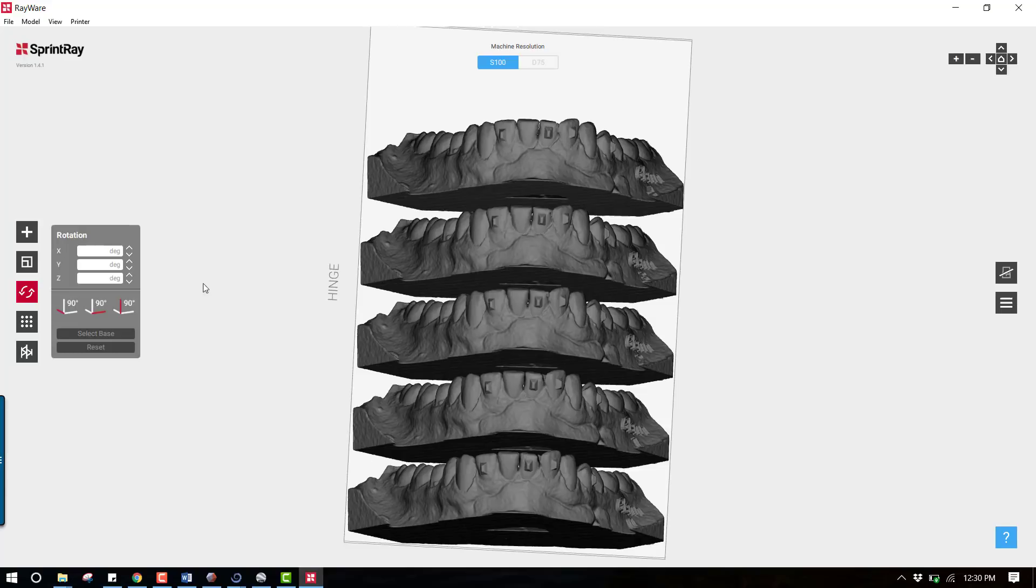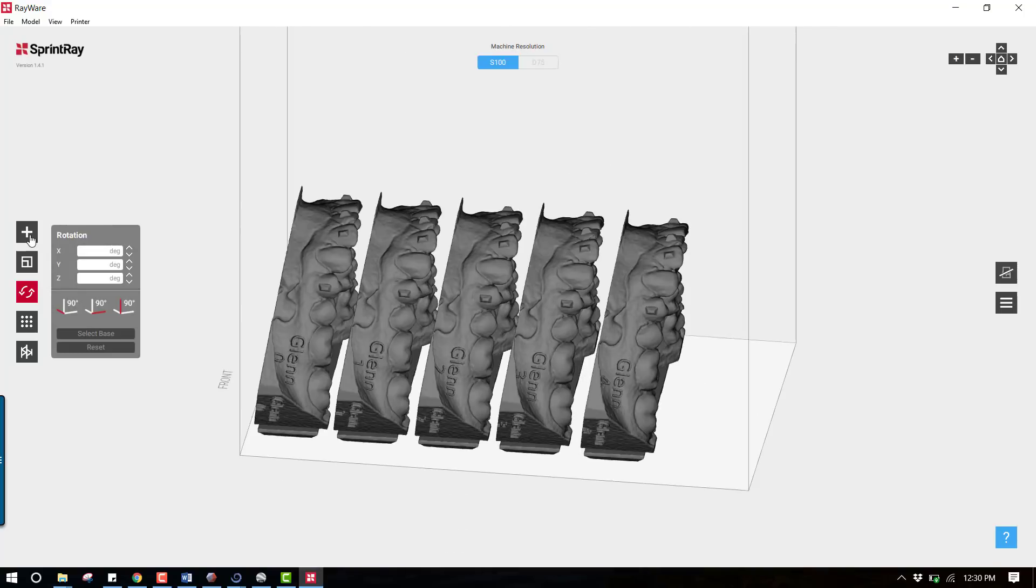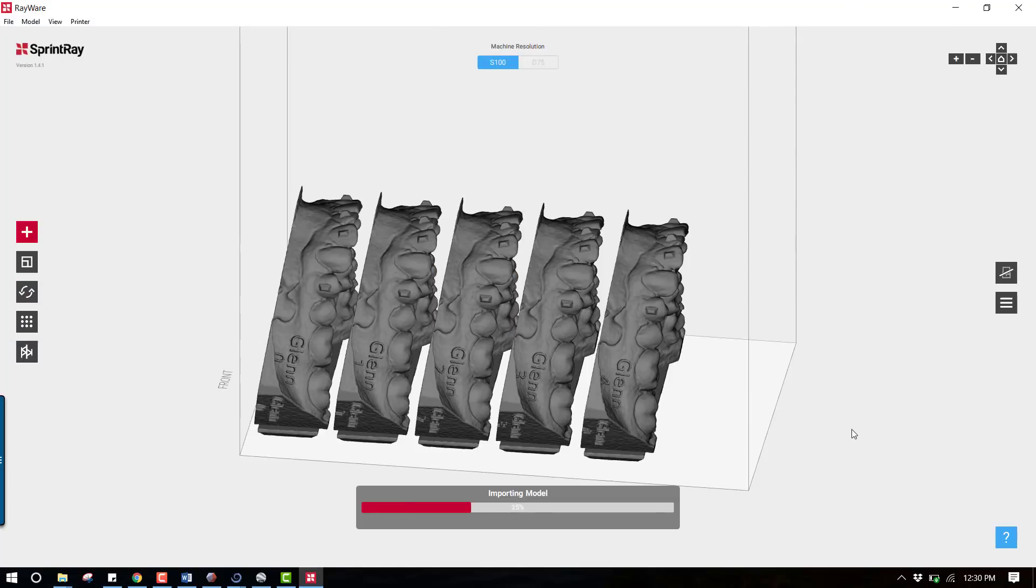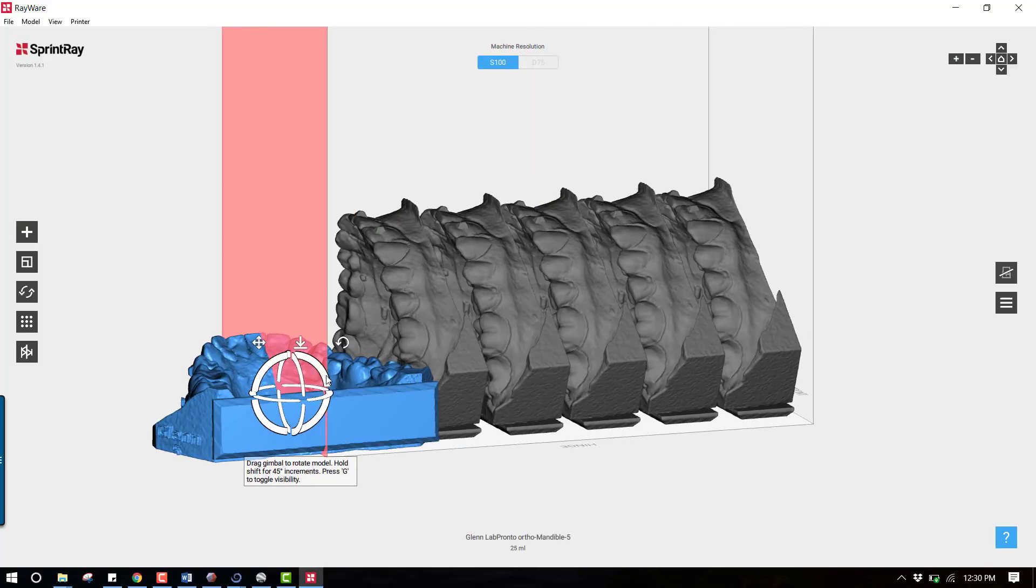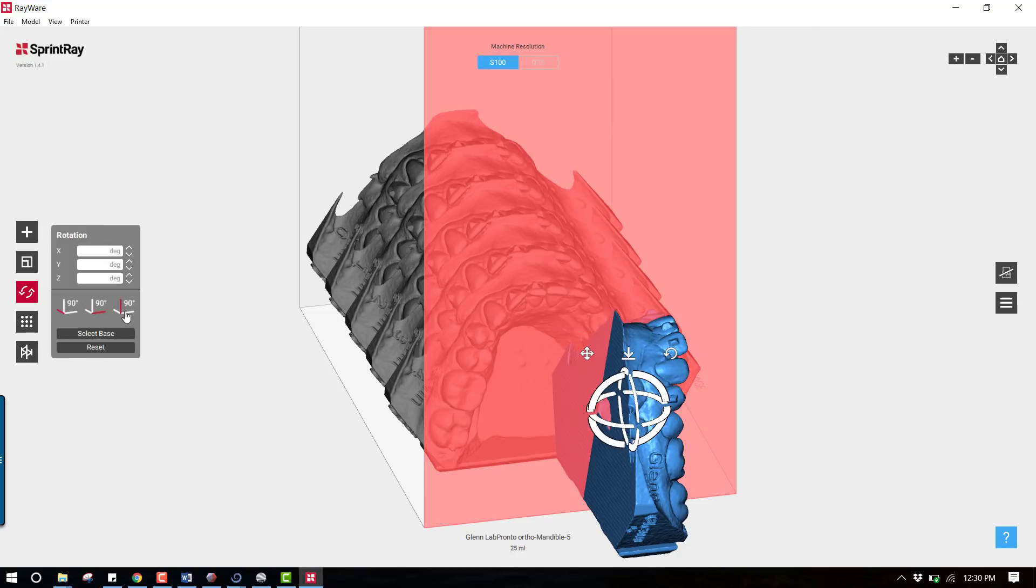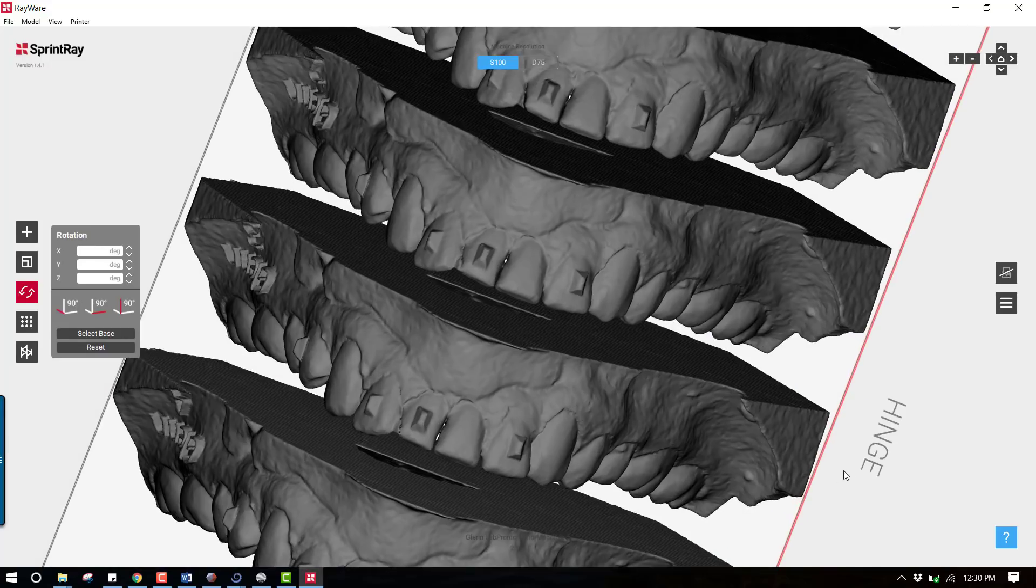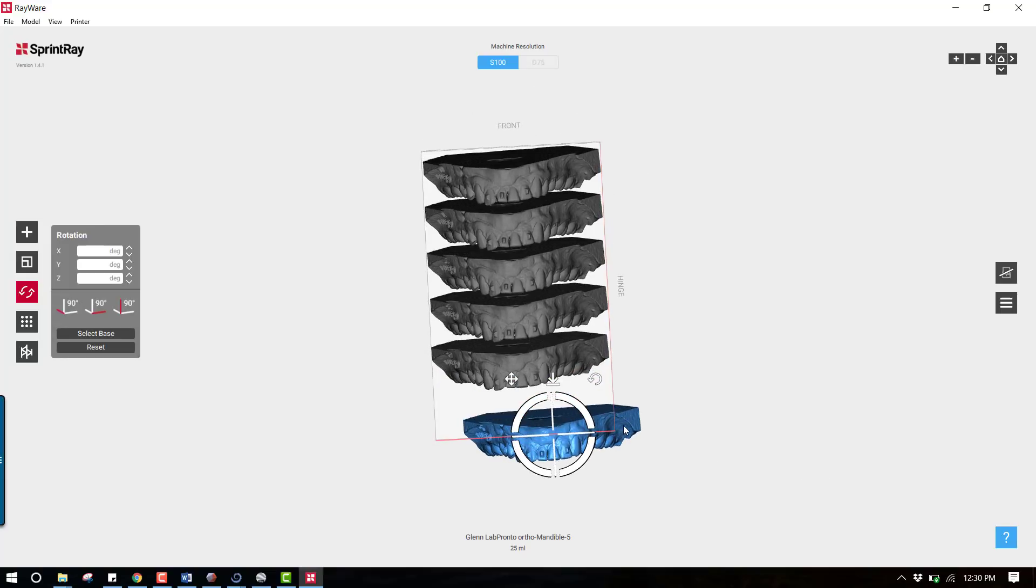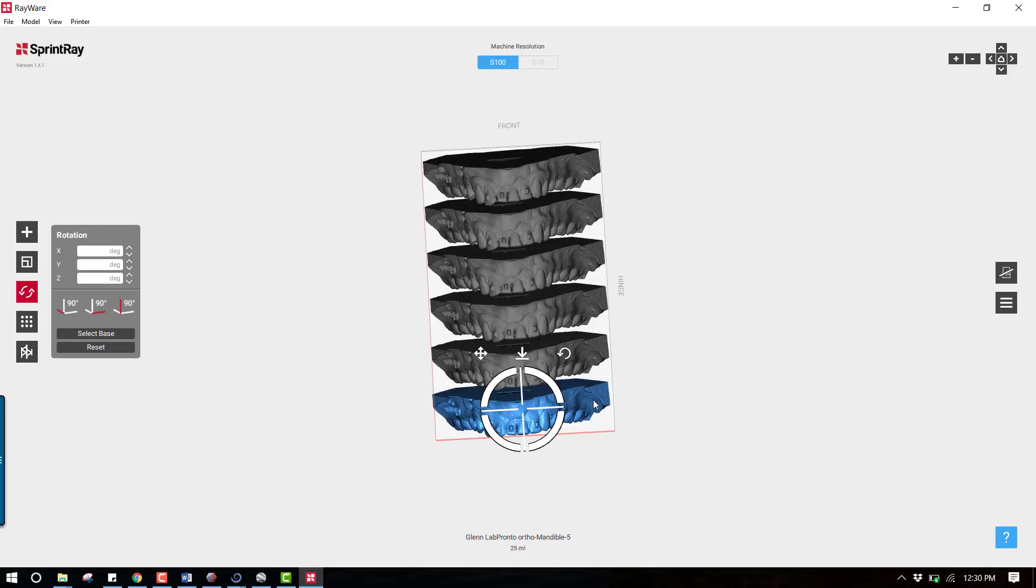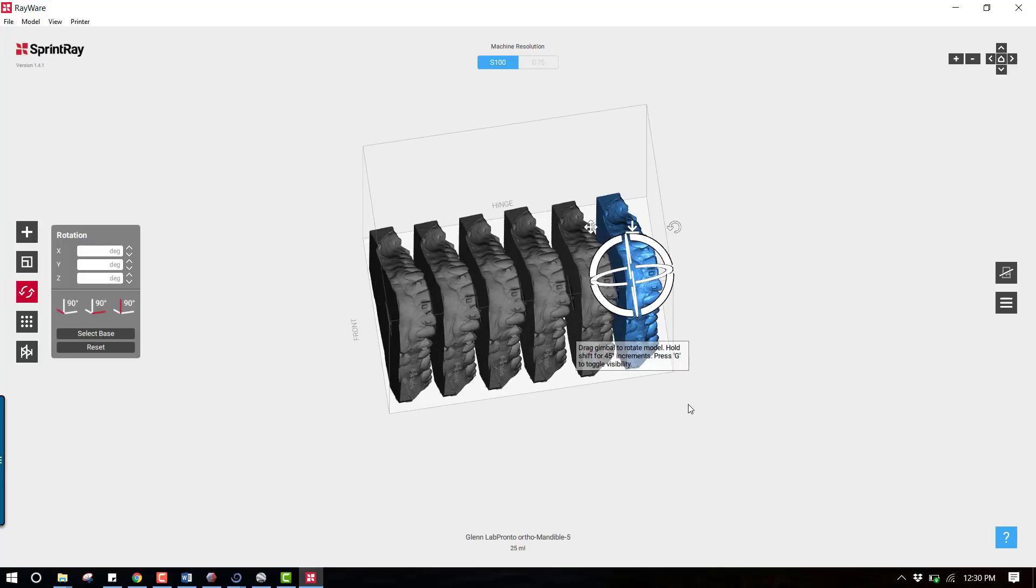I'll just show you quickly how you add the models in the Moon Ray software. Go up to the plus button right here, click that, and we need to grab model number five on the mandible so I'll open that. It'll pull it in but it's not going to be oriented to the print bed just yet and that's very easy to do. I can click the model, it's selected blue, and then this arrow indicates where to select the base - so if I stand it up on its end that is now the base. If we wanted to rotate this I can simply rotate this 90 degrees and now just line it up in the software on the build plate. This rectangular shape that you're seeing right there is indicating for us what the build plate is and the space that we've got available for placing a model onto.